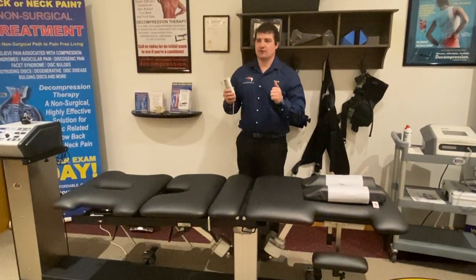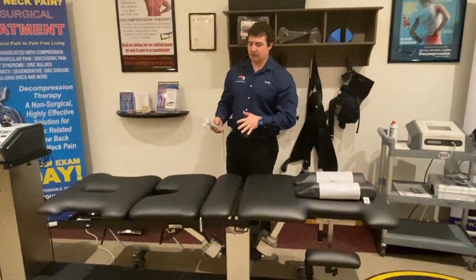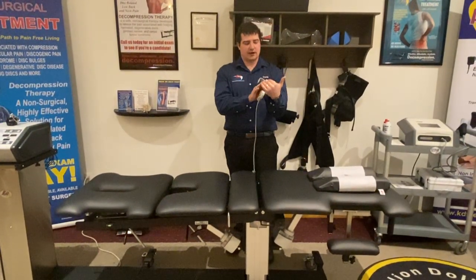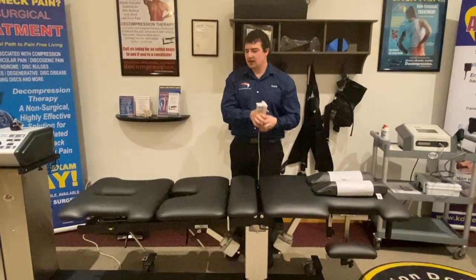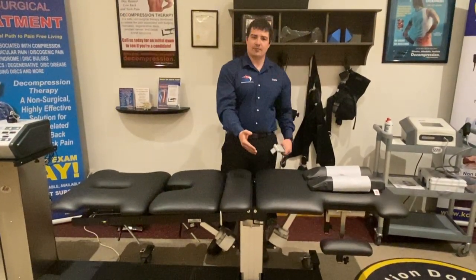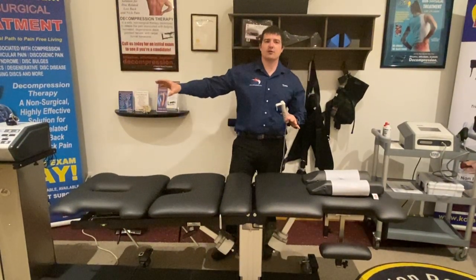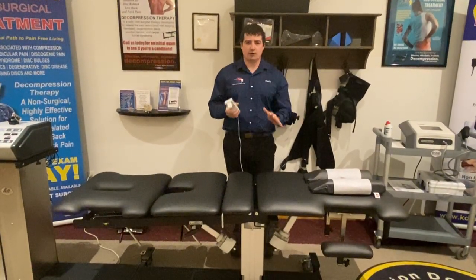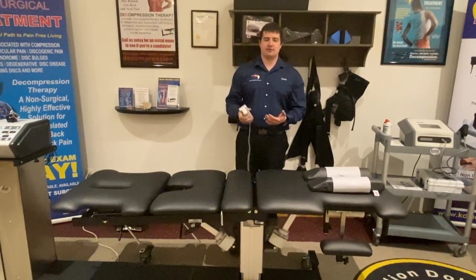If a patient has a posterior problem, it's more likely going to be either into extension or into flexion if they have leg symptoms. That's why it's called the NeuroFlex. You can create flexion, open up the neuroforamen and the canal, and take pressure off the nerve root from the herniated disc — centralizing peripheralized leg pain from the calf and thigh back to the low back, even by positioning before you distract with the computer force protocols. This is the only system where you can put patients into multiple positions for comfort and less pain before creating decompression forces.